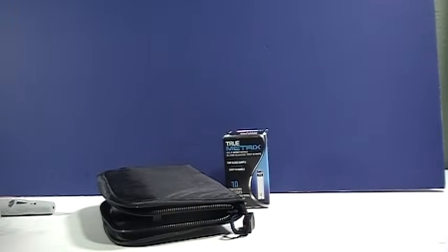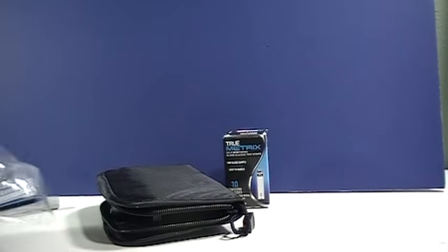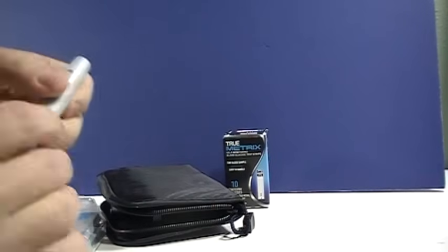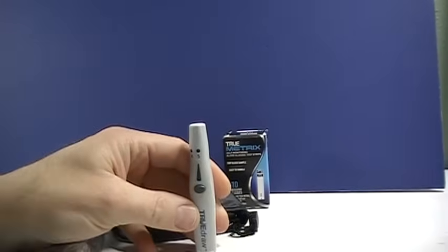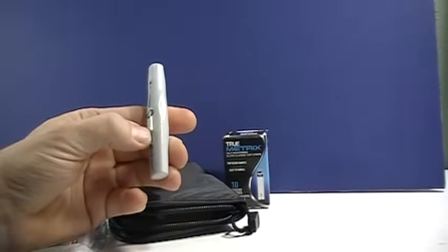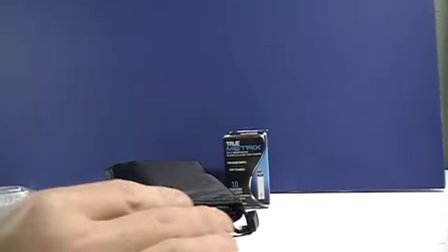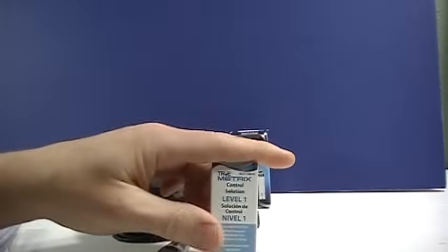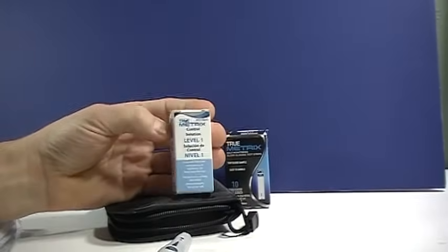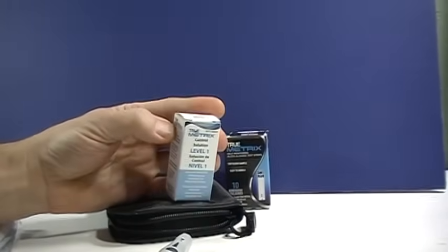This is the lancet device that is what you'll use to poke your finger to draw the blood. This is the control solution. We'll go over how to use a control solution in a separate video.